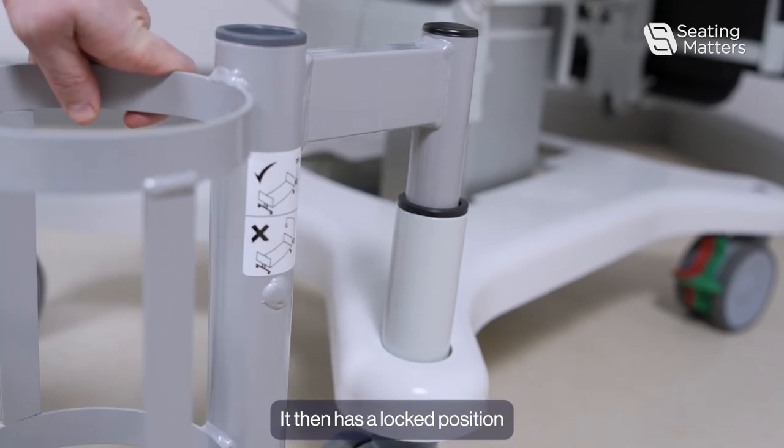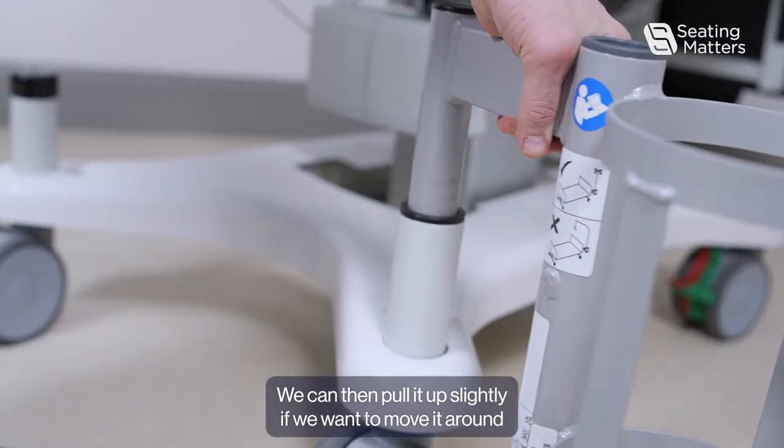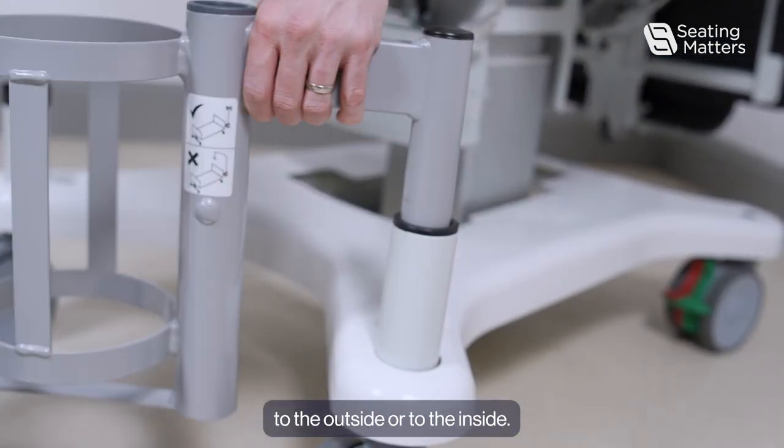It then has a locked position. We can then pull it up slightly if we want to move it around to the outside or to the inside.